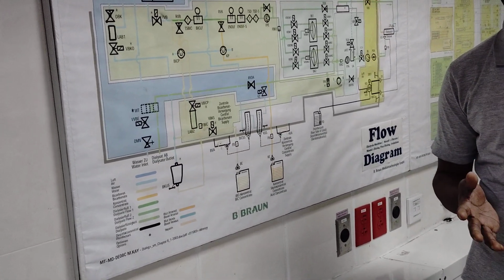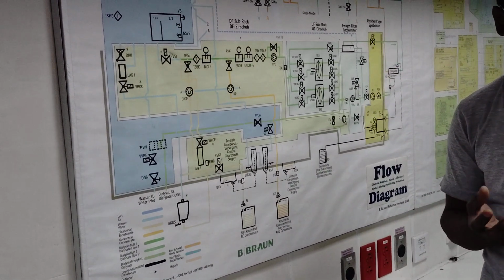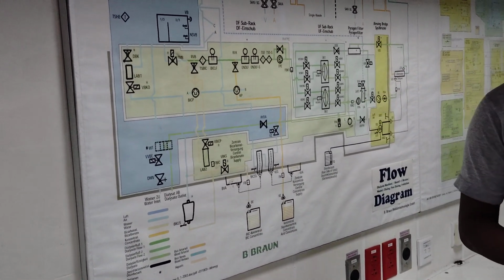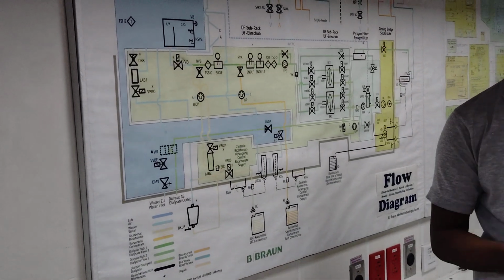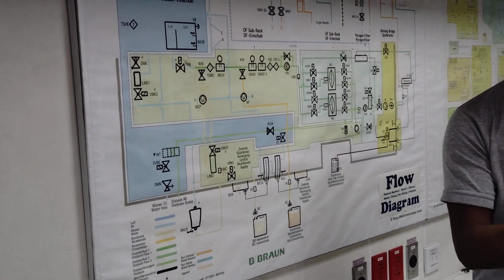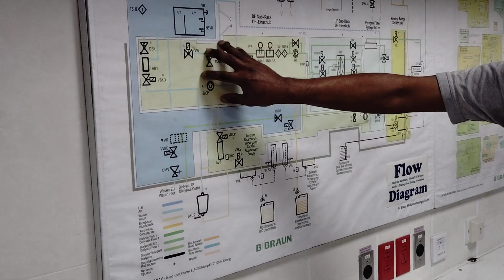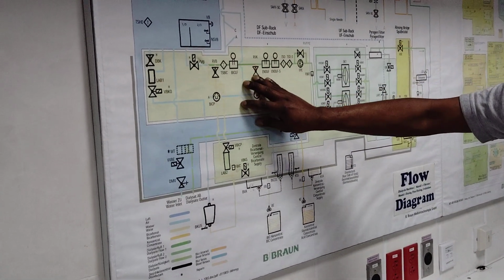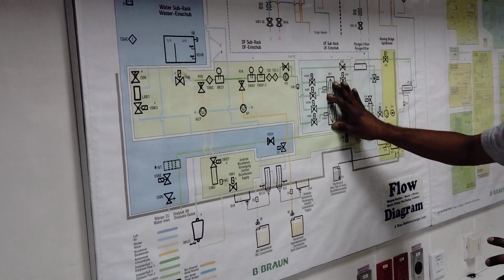They are removing the body fluid from the patient. Removing the body fluid, so this fluid will get balanced. They will take some inside and partially they will remove, partially they will take inside. The fluid balancing. So this is how it first prepares that solution as per their program. Once it's ready, it will send it to the dialysis side.